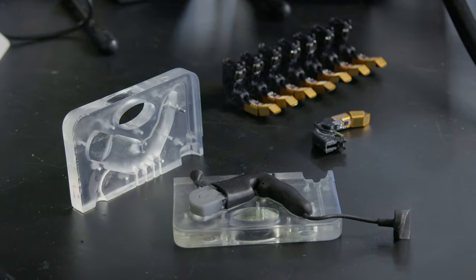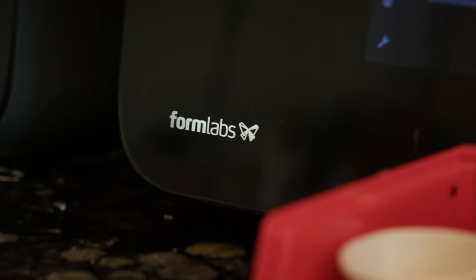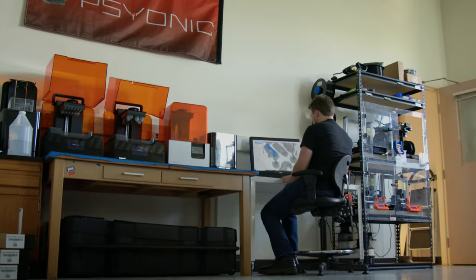There's no way we could have competed with other prosthetics companies if we had to abide by purely traditional manufacturing. 3D printing, especially the Formlabs 3D printers, has come in absolutely critical for that development process for a startup our size.